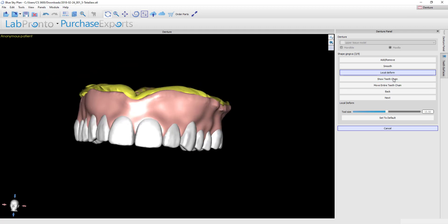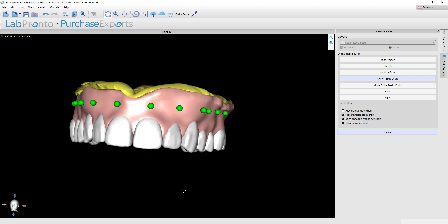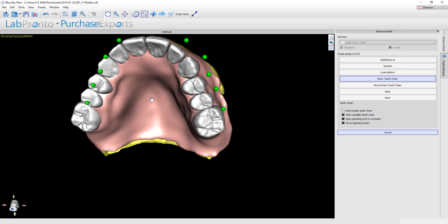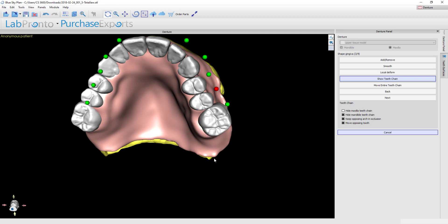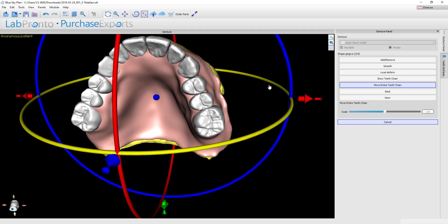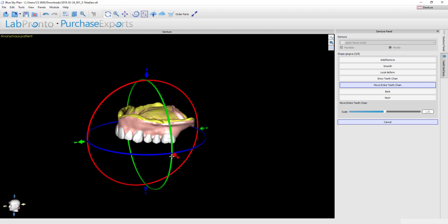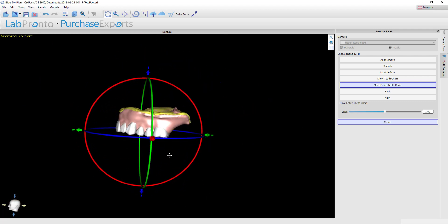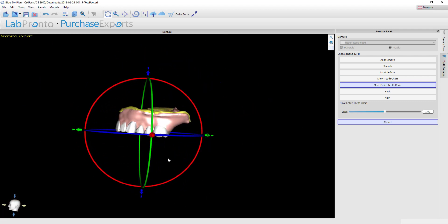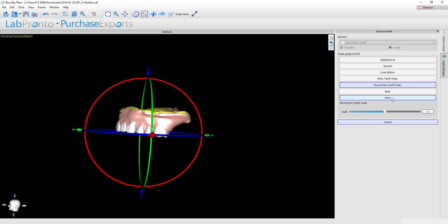Continuing down the list, we've got the show and hide tooth chain, so you can actually at this stage alter the tooth positions if you wanted to. However, I really think you want to try to get all of that done in the previous step, and at this stage only be focusing on festooning the gingiva. You could also move the entire tooth chain at this stage—same comment on that, you'd probably want to do this mostly at the prior stage, but just in case you needed to make a minor change, you can do that here without losing all of your gingival work. Finally, you've got the back button if you need to go back to the previous step.